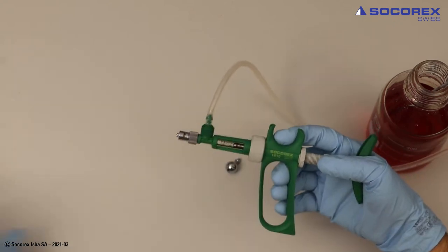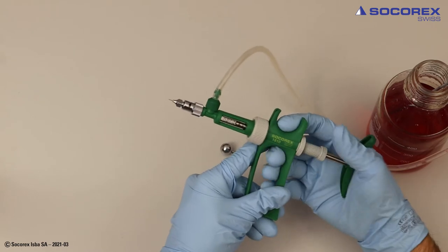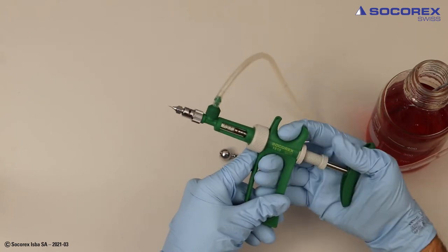Add high quality injection needle having length and diameter in accordance with animal size and vaccine density.